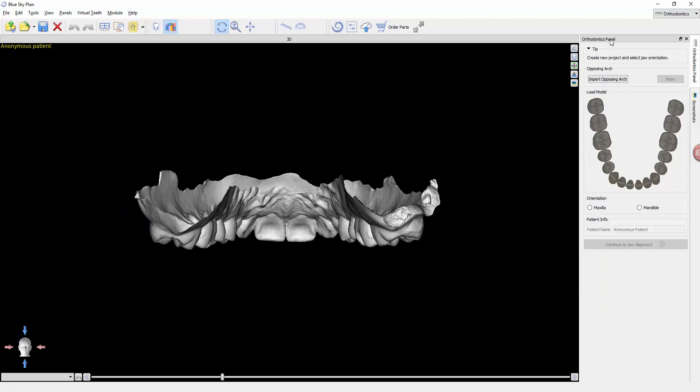Now we're going to follow over here the orthodontic panel, where everything is going to happen within this panel. As we progress forward, we're going to click a button and it will always be at the bottom to advance to the next phase of the process. It's going to walk us right through everything. If we've opened this up and we want to look at the opposing model, we're going to work our way from top to bottom.